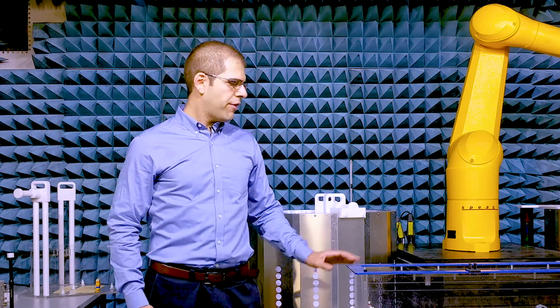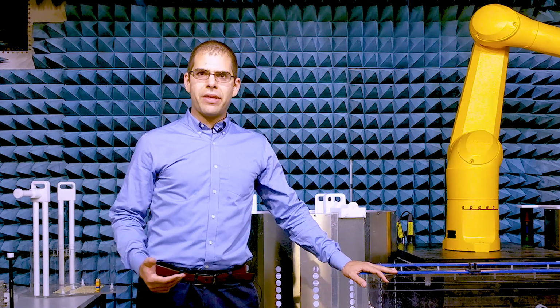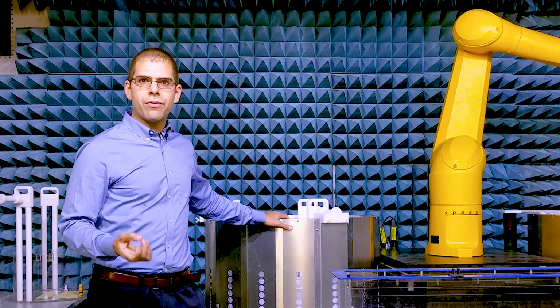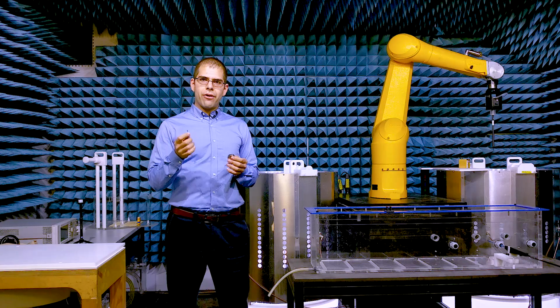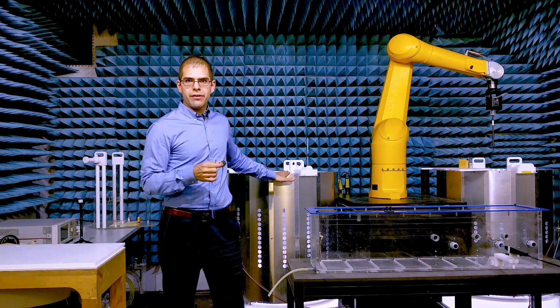In the last episode, I showed you how to characterize a device with the PIEX system, where we made a model of how the implant responds to incident fields in tissue simulating liquids. Today, I'm going to show you how to validate that model by exposing the implant to different incident fields and testing if the response matches the prediction that we get from the PIEX model that we made in the last video. Since the last video, I calibrated the PIEX model by measuring the exposure under an incident condition.